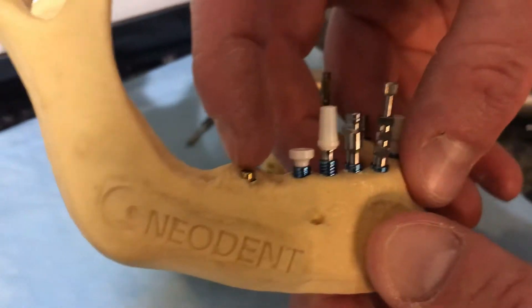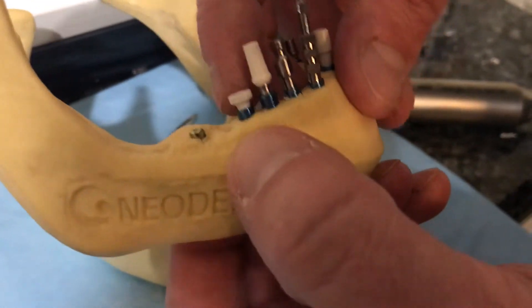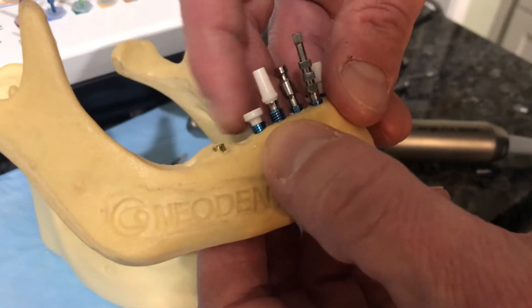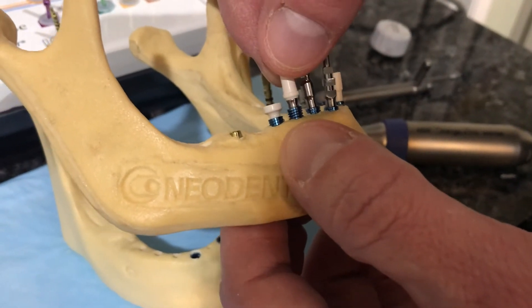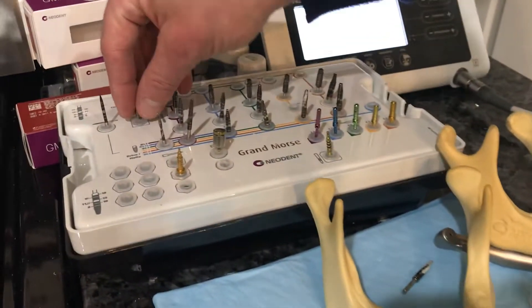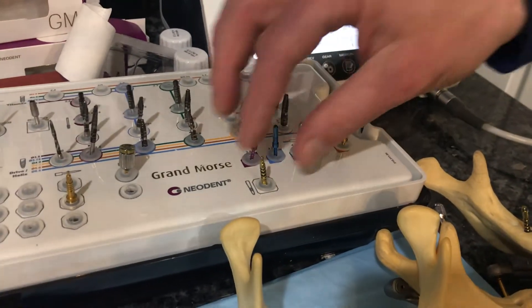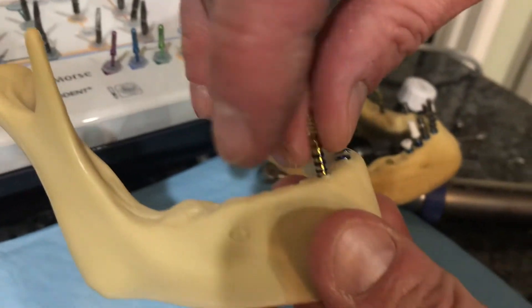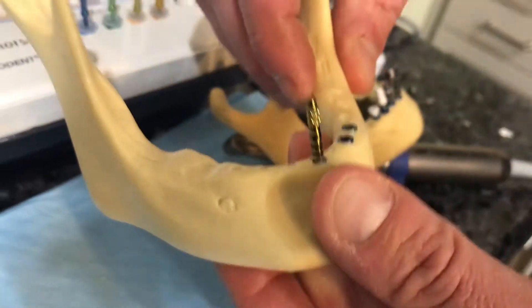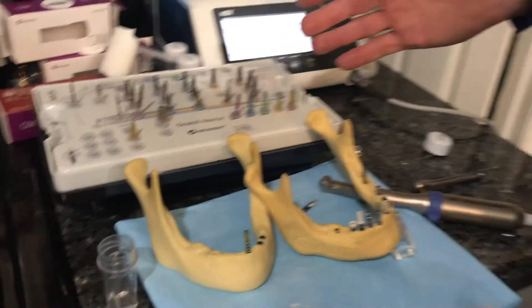When putting the healing abutment or cover screw on, options include a 2mm cover screw, a 5.5 flared healing abutment at 5.5 by 2.5mm height, or a PEEK temporary abutment — three different things we can place the day of surgery. The kit also includes a drill extension, countersinks for just the top, directional indicators, and a tissue measurement gauge. This pin twists down onto the implant and lets you bring tissue back up to pick the exact healing abutment with the appropriate height. This is the GM Helix implant system.